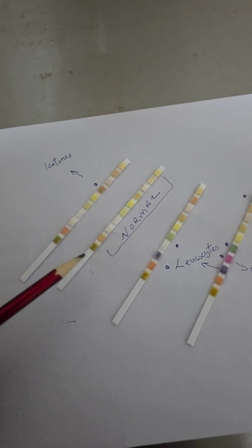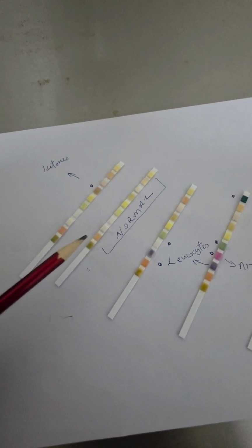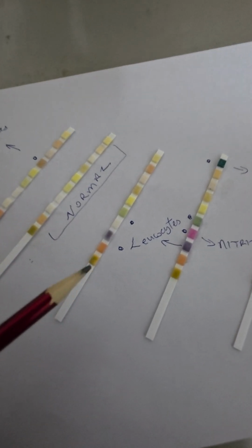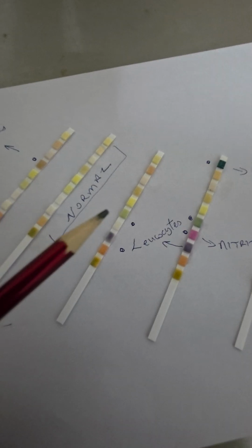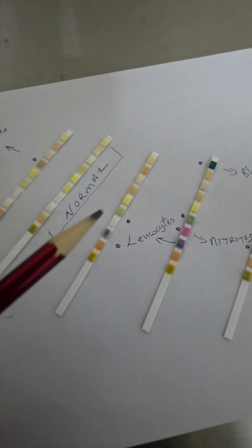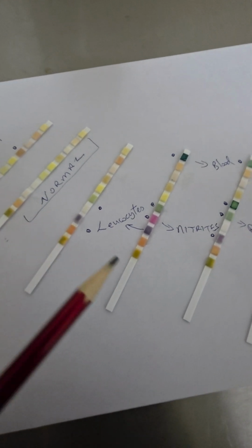Forgetting these two here, these two are specific gravity and pH. They are highly variable, but not the key area of my discussion this morning. Now, here, you have this one here, leukocytes, and you have protein. So this patient has a lot of white blood cells and a lot of protein in their urine. All right, well, significant protein.